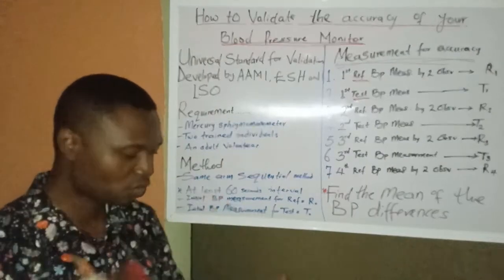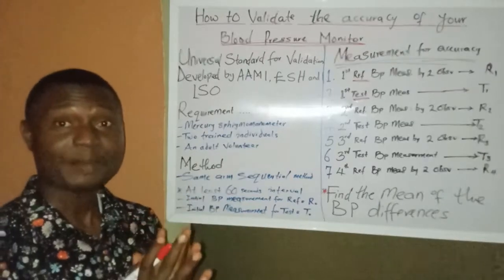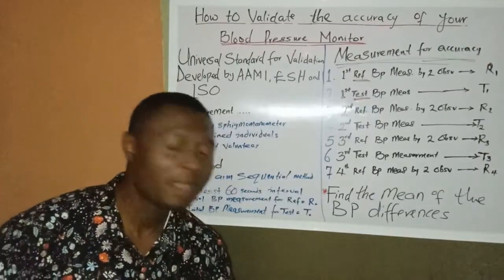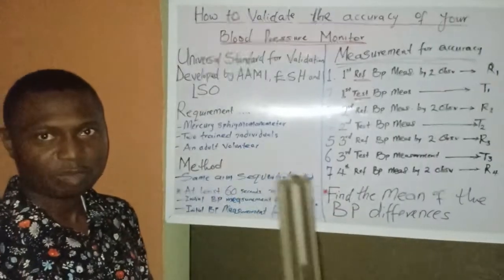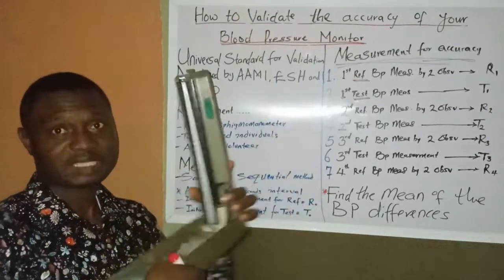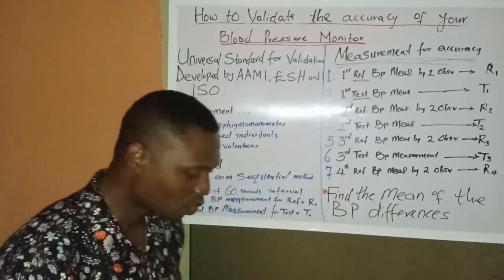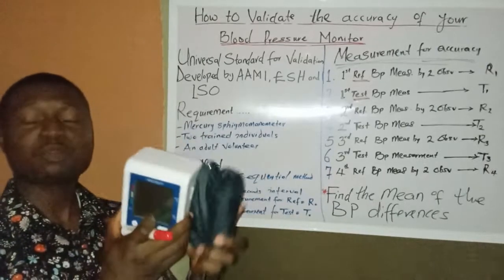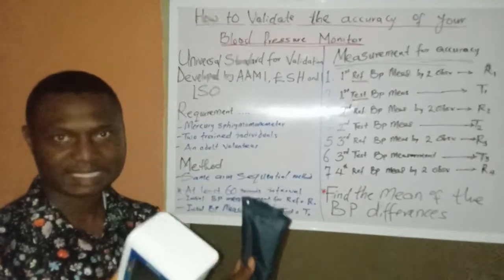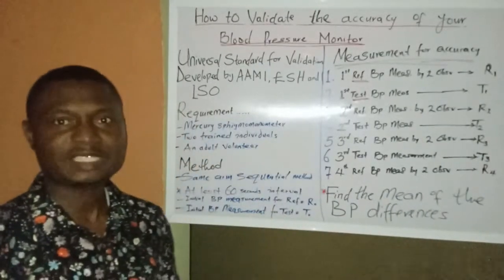It is a simple procedure which we will go through stage by stage. First, there are some basic requirements. Number one, we need a mercury sphygmomanometer — the traditional type of mercury sphygmomanometer, which you can see here. Apart from this device, we also need the specific blood pressure monitor whose accuracy we want to confirm and validate.